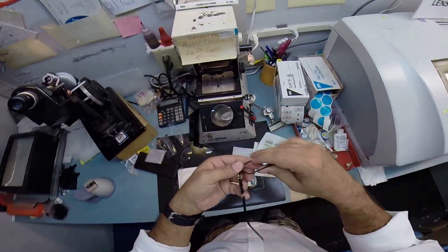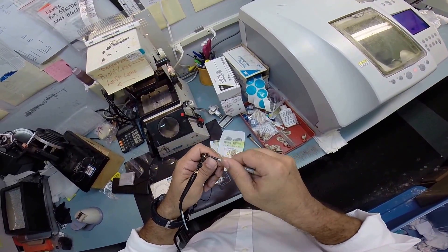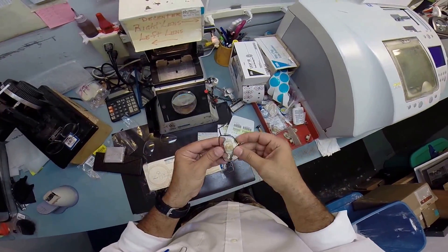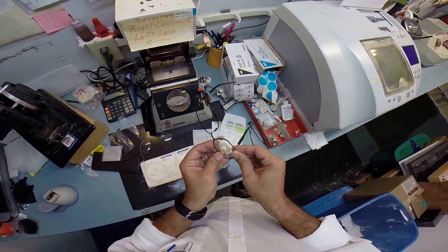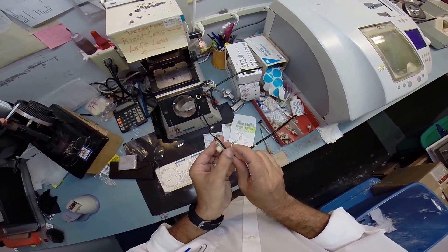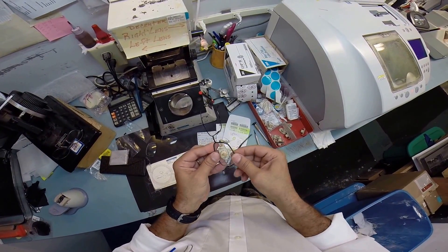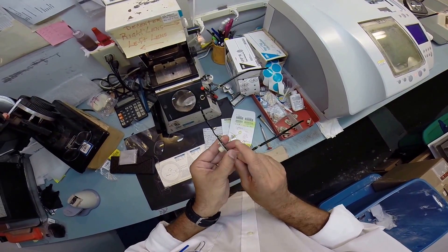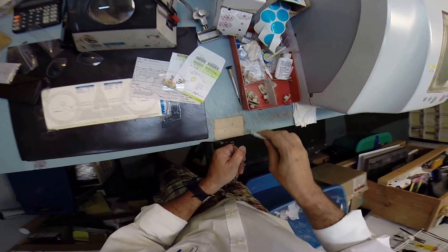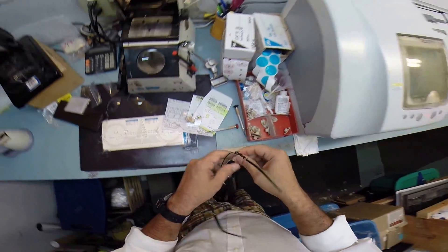So I need to go ahead and get your lens mounted in this frame. I'm going to use my little Phillips head screwdriver to loosen everything. I'm going to get your lens mounted. It's still fighting me — it's fighting me. Then I'm going to pinch down — it's not going in that easy. It's a little nervous being in front of the camera for the first time. So I'm going to take my screwdriver and tighten everything down perfectly. Righty tighty.